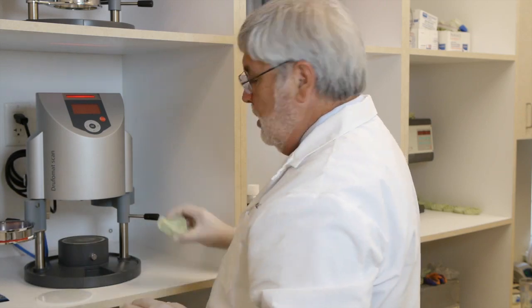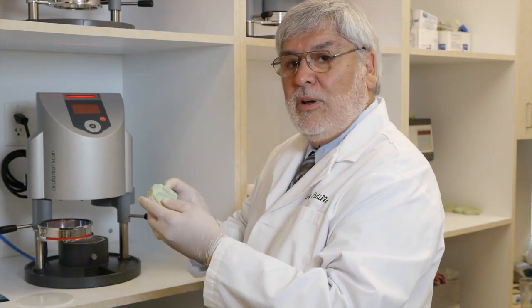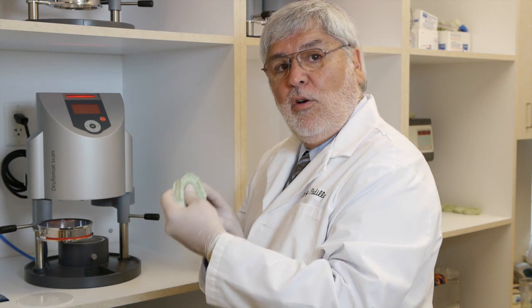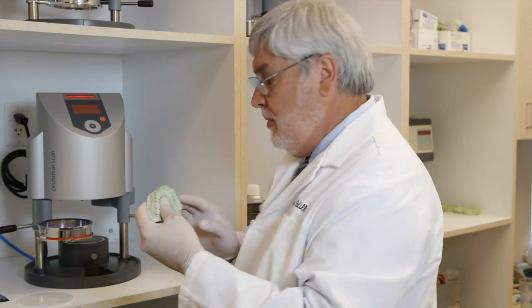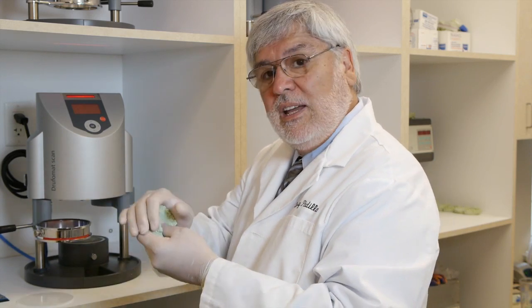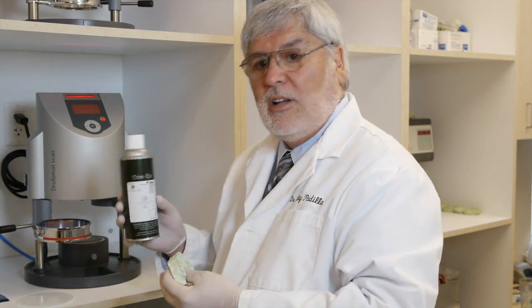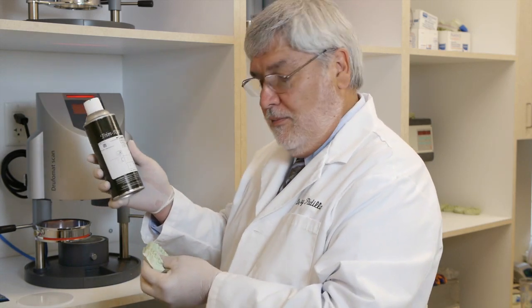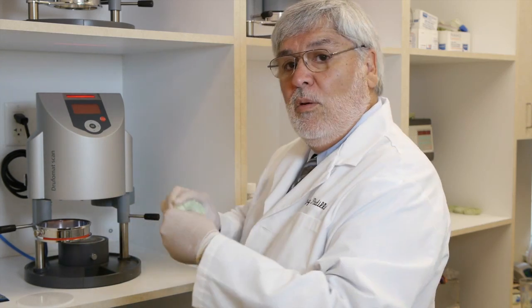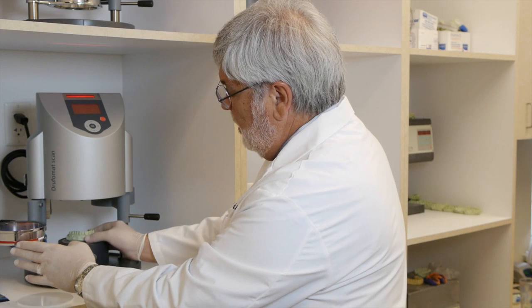Material is in the machine. We're going to place our mouth guard on the tray. Now this model has already been pre-lubricated with orthodontic model soap for about 30 minutes. This will keep the mouth guard material or any other plastic material from sticking to the model and possibly breaking the teeth. It's extremely important to lubricate these models. If you don't have the orthodontic model soap you can use Trim Right silicone spray by Dentsply. Once it's been lubricated, place your model on the tray.